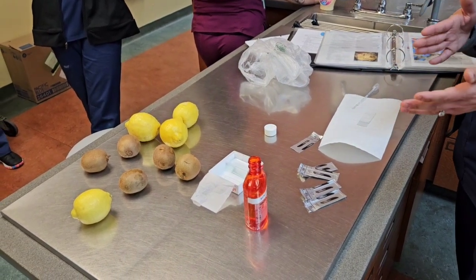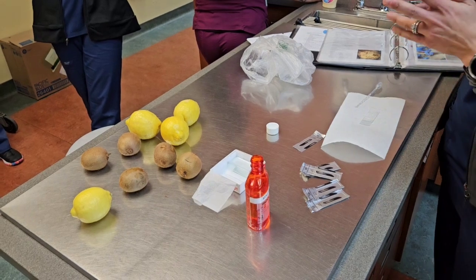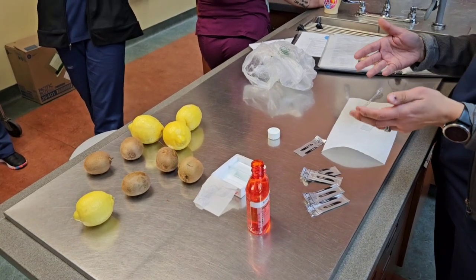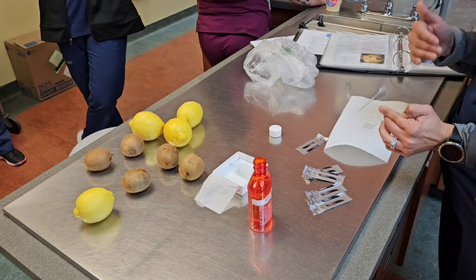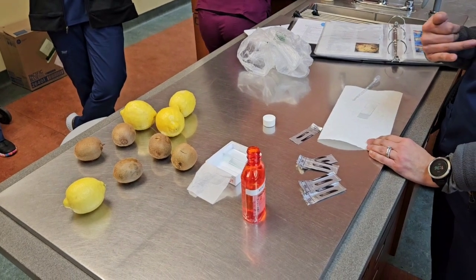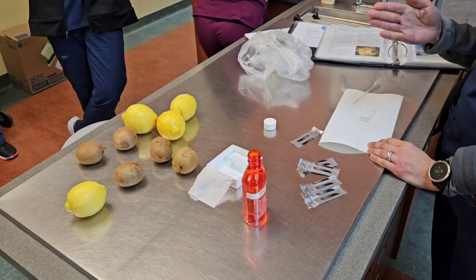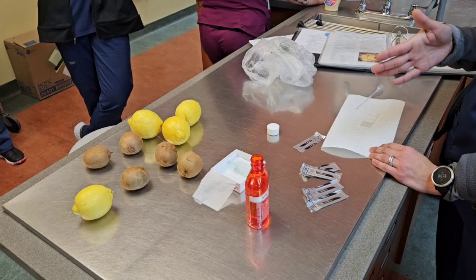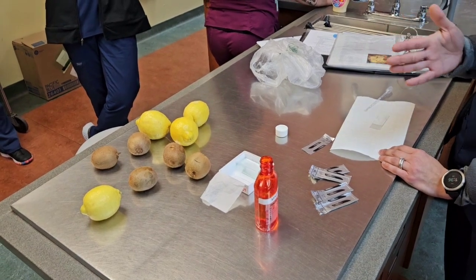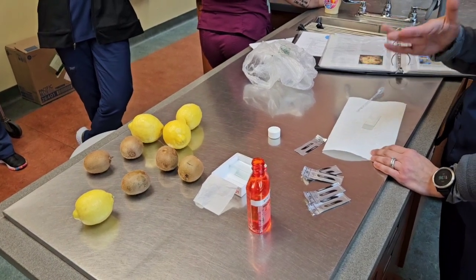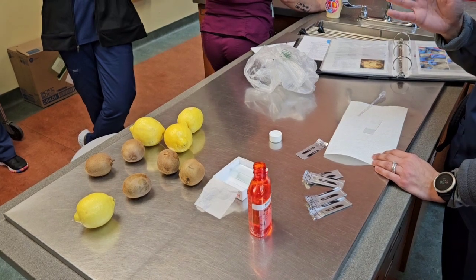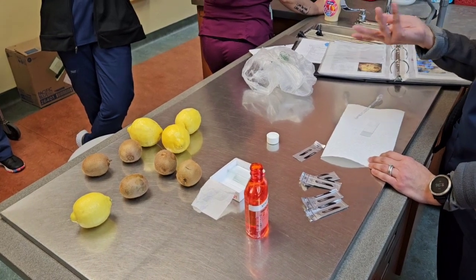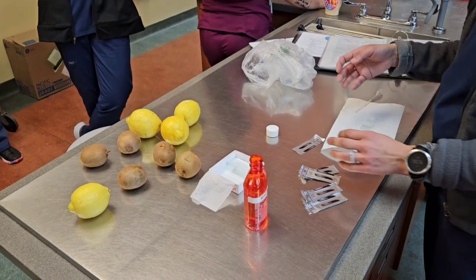So we're going to play with some fruit. The way you would do a skin scraping, there's much more complicated things that we do as technicians, like drawing blood from a cat jugular or a cystocentesis, which is way harder than doing a skin scrape. So there's no reason why we can't be doing this rather than the doctor. If you feel comfortable with what you've learned or already do them, you can always ask the doctor, hey, can I do that, so they can go do doctorly things, because it's not so difficult.